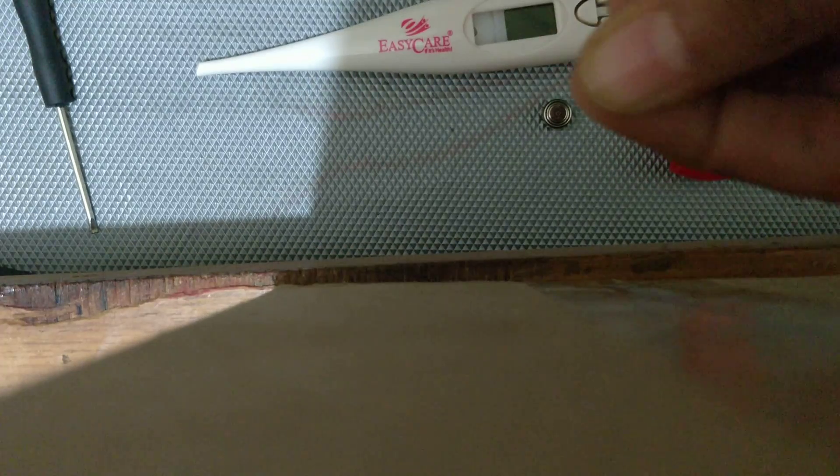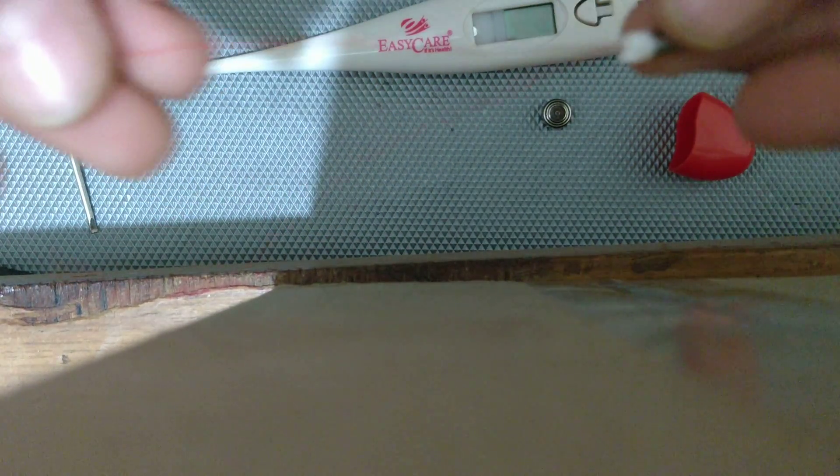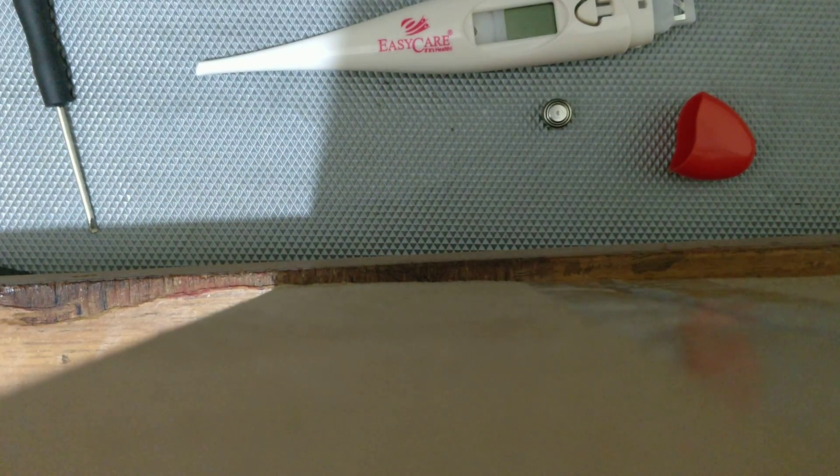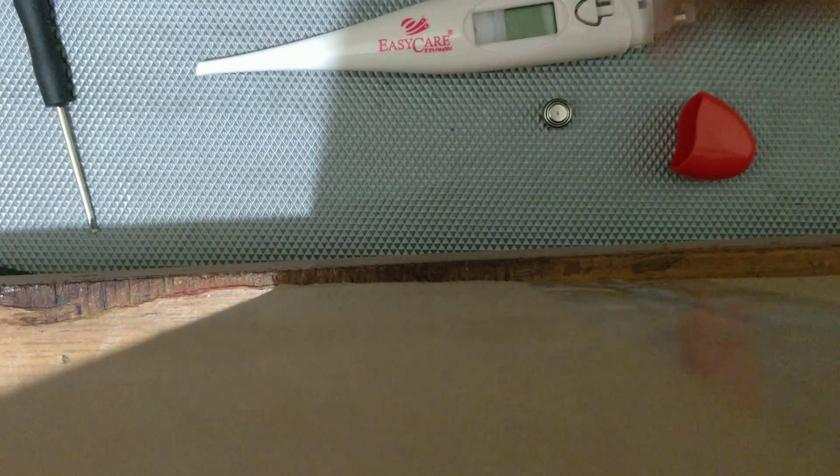If you can see, there are two wires. One of them is this and this. I think one is VCC, another is ground, and in this way it must be producing the analog readings.